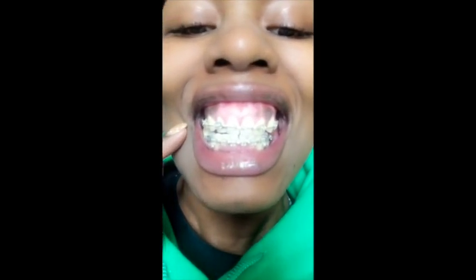I'm here at the orthodontist. The bite plate that was cemented in the roof of my mouth has caused my roof of my mouth to swell, so I get my bite plate out today. I'm also going to get a bunch of bands going on in different places, which is gonna be painful, but at least I get my bite plate out. The gaps are closing, as you can see, except they're gonna work on this next.